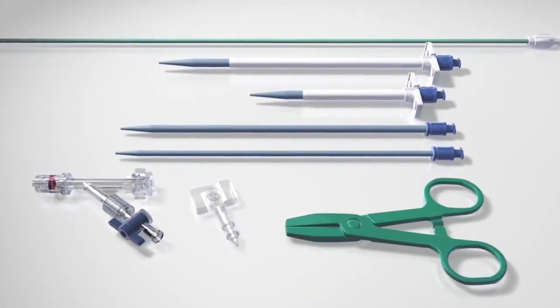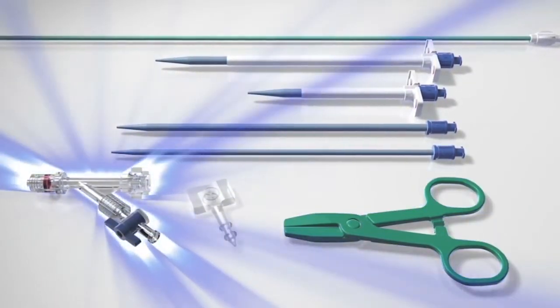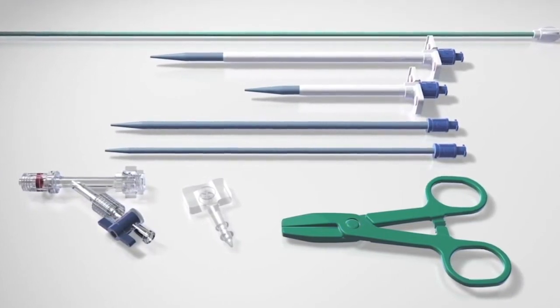A hemostasis plug, atraumatic clamp, and Y-valve with stopcock assembly are also provided.